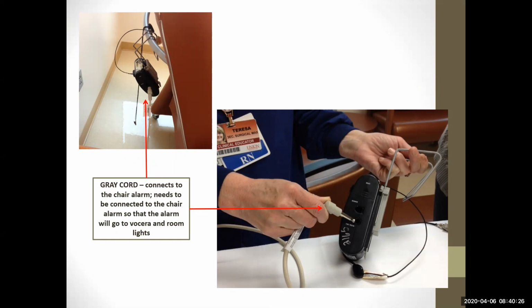You can put this on the patient as an extra precaution to make sure that patient does not fall, or that if they stand up you know about it. It's always best practice that if you think somebody's going to stand up when they're not supposed to, try to stay with them. But for those other patients where you're just doing it as a safety precaution, this is a really nice feature.